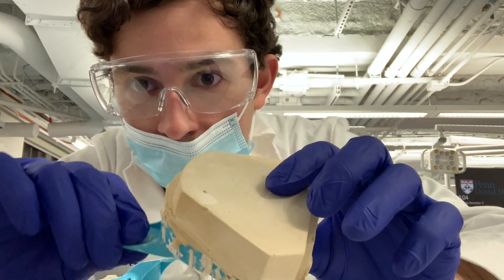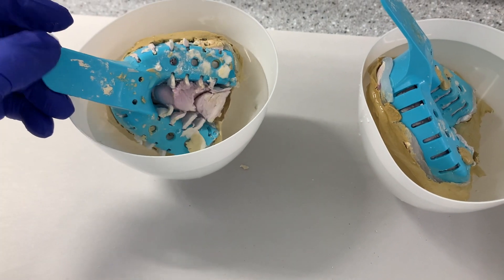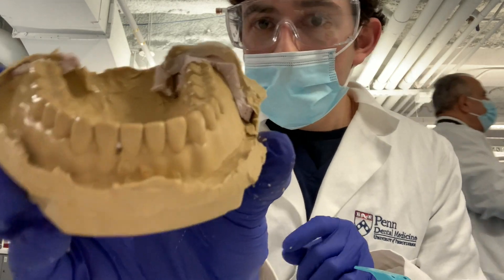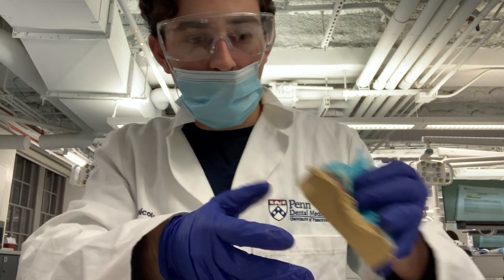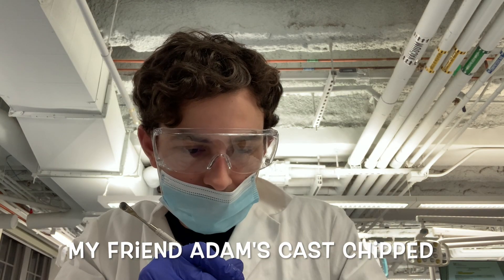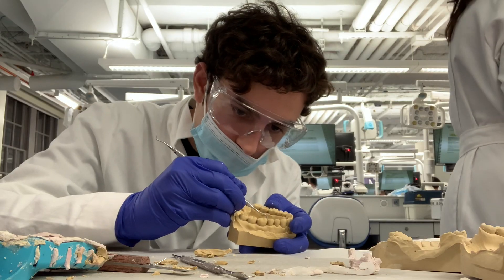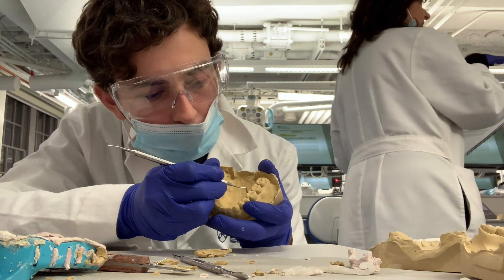So that's the class where we poured our models — now I'm going to separate them. Give them some time to harden up. Since I let them sit too long they recommend I soak them to make them easier to separate. This one came out way better. Now I'm using the spatula to clean off the little air bubbles. My friend Adam had a piece of his central incisor chip off but he was able to fix it. Now you see me using a Greenie — a finishing instrument — polishing off any impurities and alginate accumulations left.